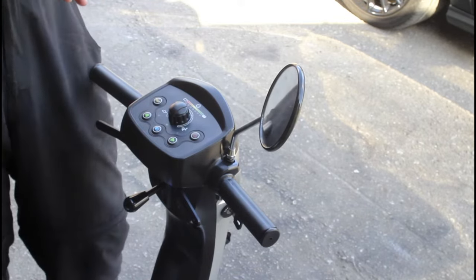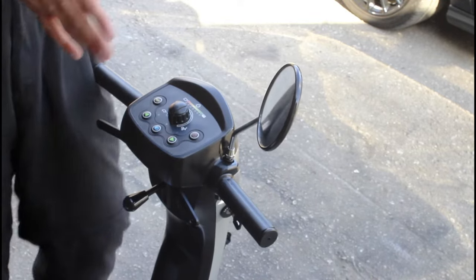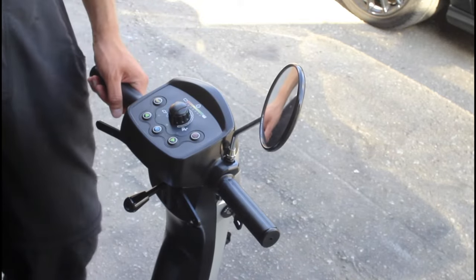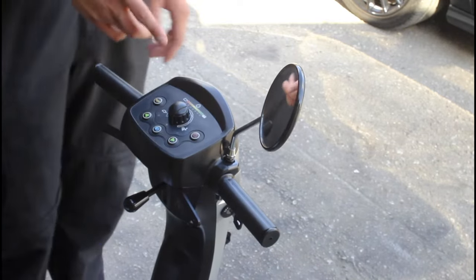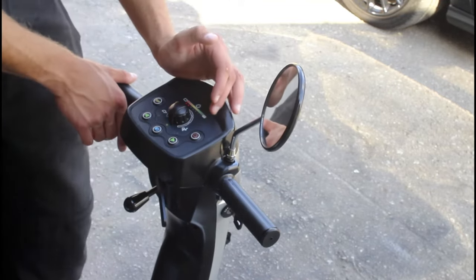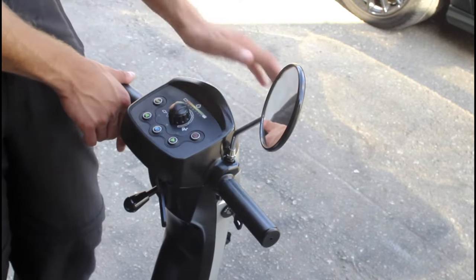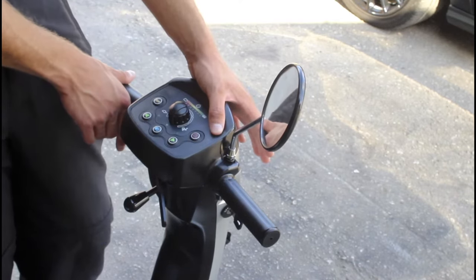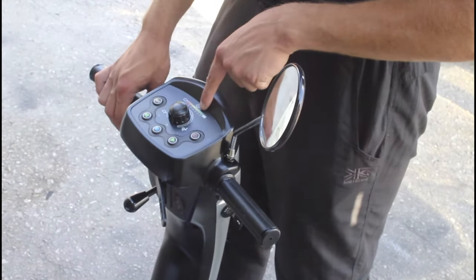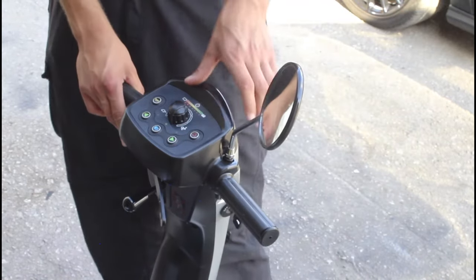If you're slightly heavier, you'll want a bigger model — an eight mile an hour with 50 or more ampere hour batteries and a long range. We've got a couple of refurbished Rascal Pioneers and we always put a pair of brand new 75 ampere hour batteries on those models. You can see the batteries have gone down another bar here — with the light on, this may indicate it needs a new set.